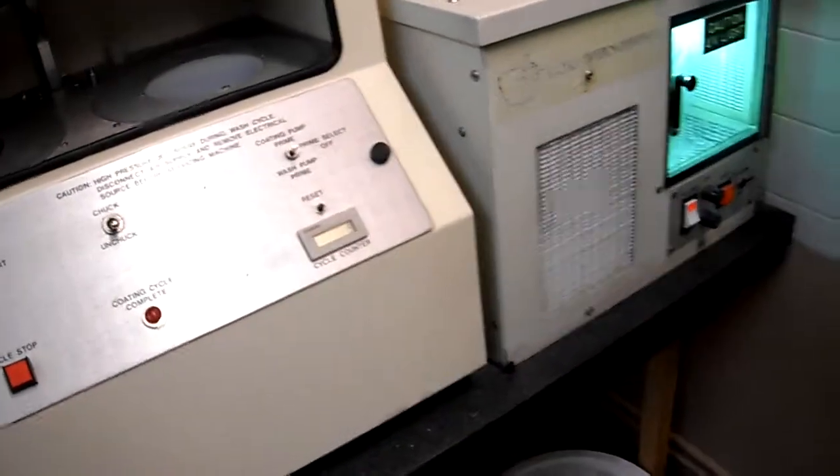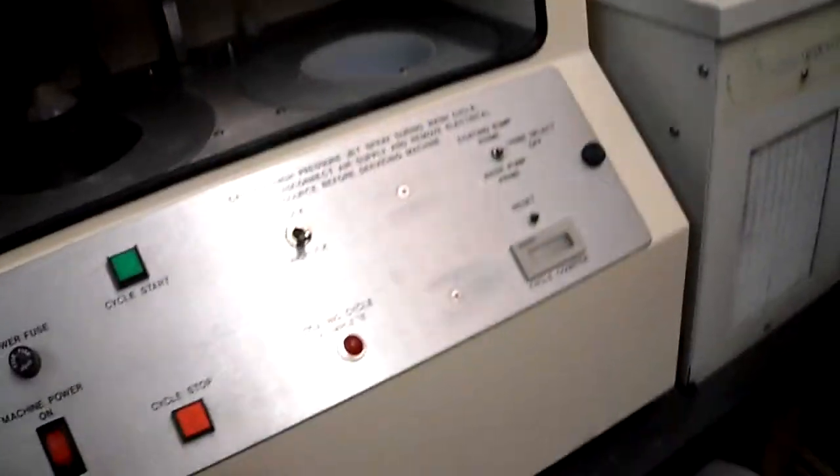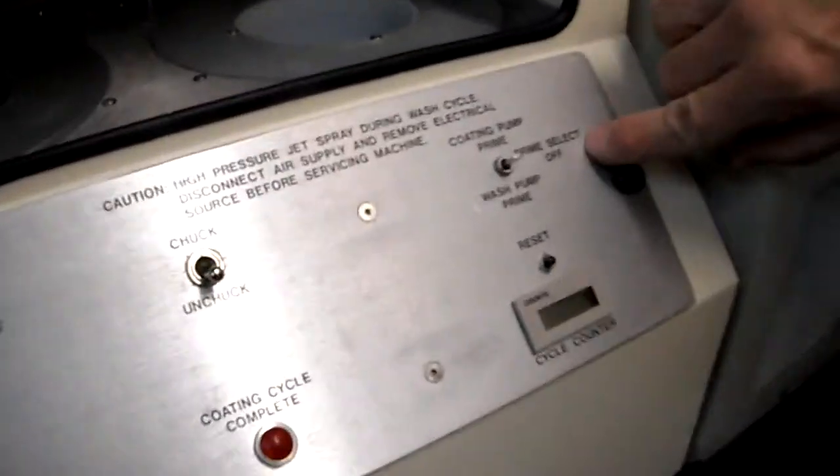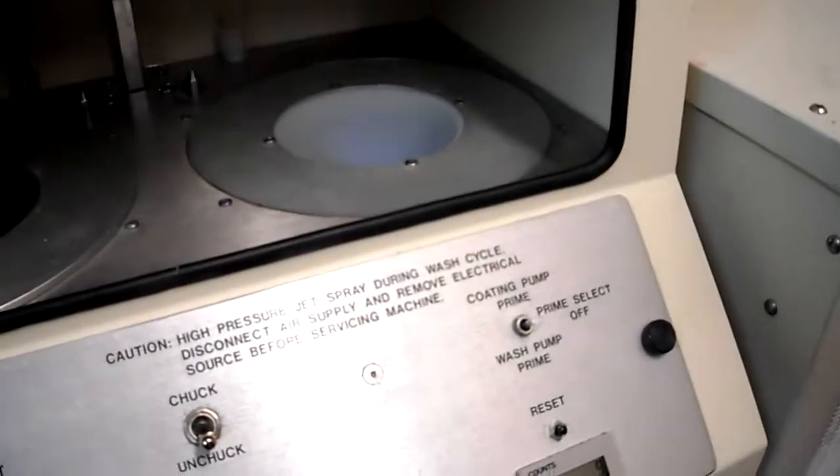Now, one question before we began this short movie. What were the switches you pressed before? You want to prime two things. You want to prime the pump that provides the coating.